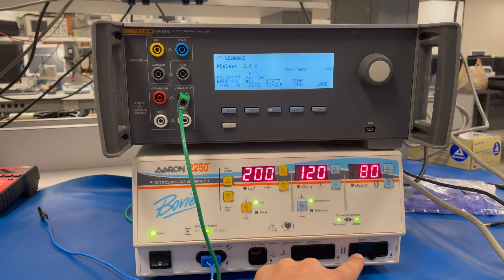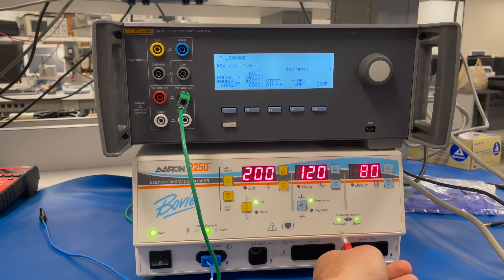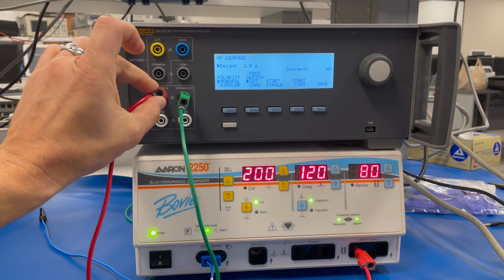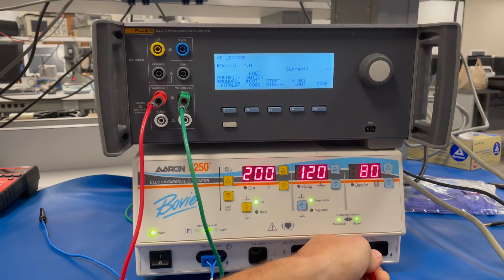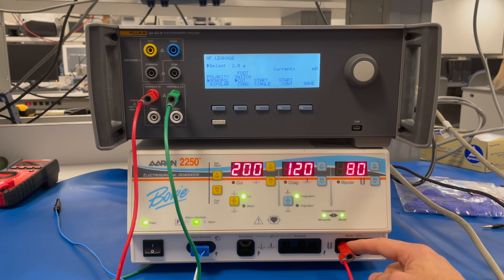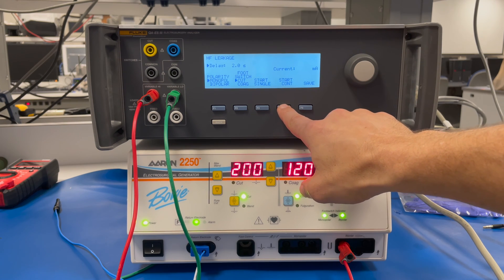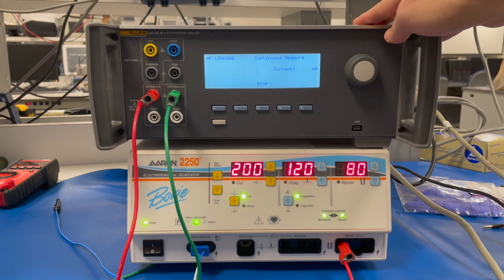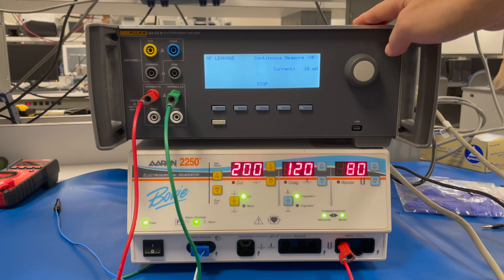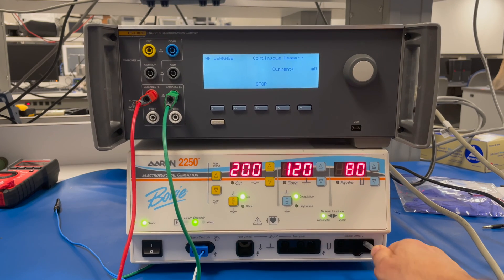The next thing we're going to do is test bipolar mode. To do that, we're going to take the red lead and connect it to this port over here, then connect the other end of the lead to the variable high. Make sure you give it a nice push and that it's completely inserted into the bipolar port. Next, we're going to hit start continuous, then hit the bipolar foot switch. Then move that over to the next port.